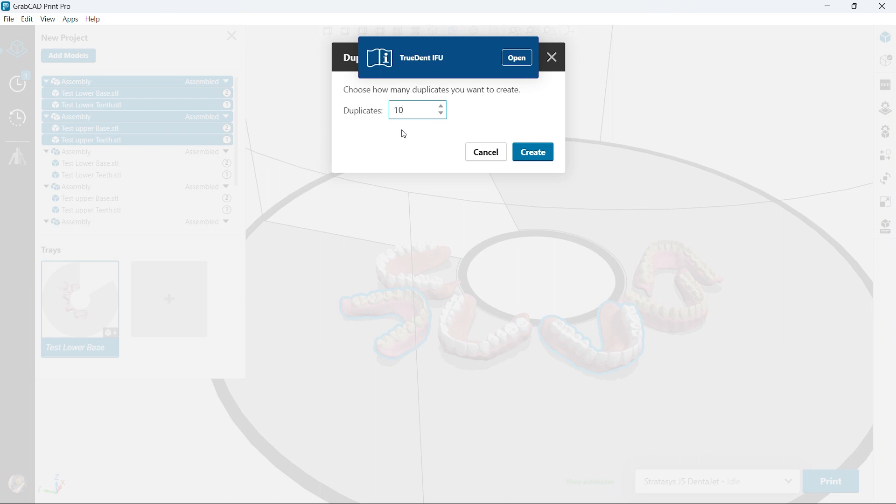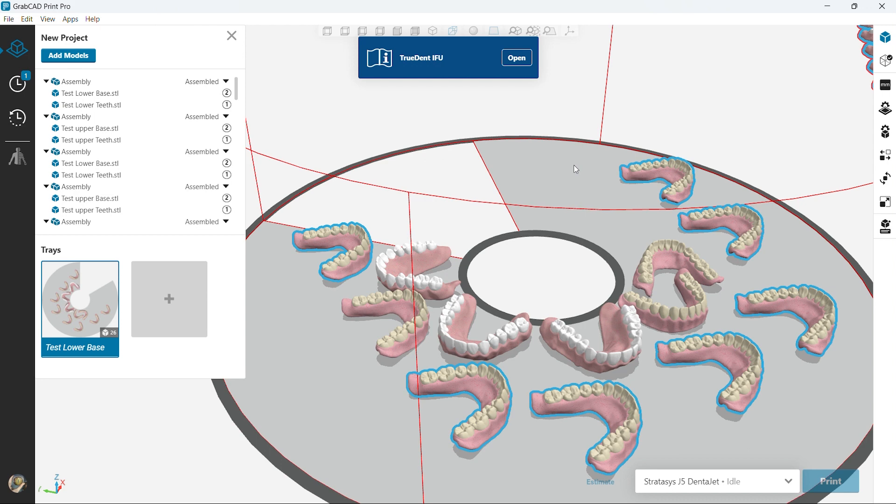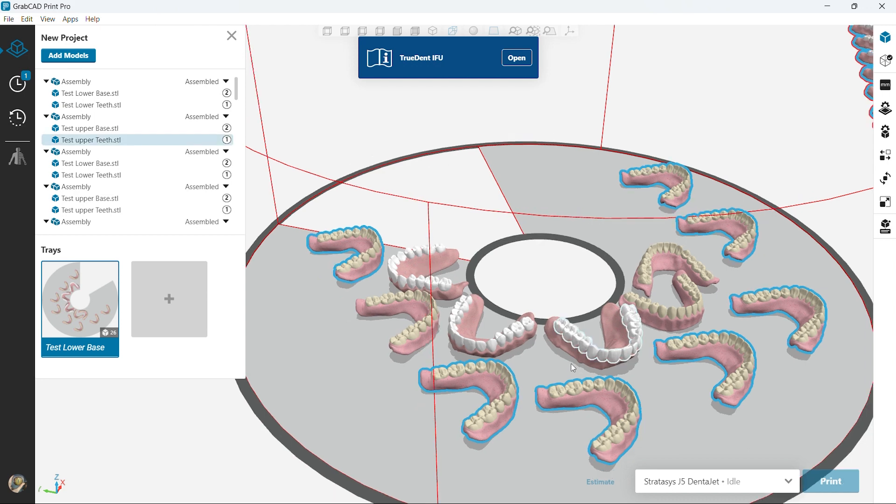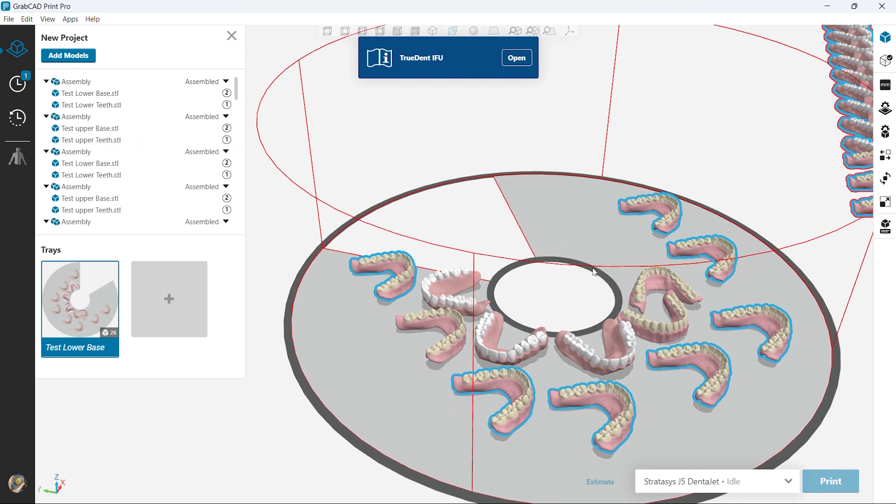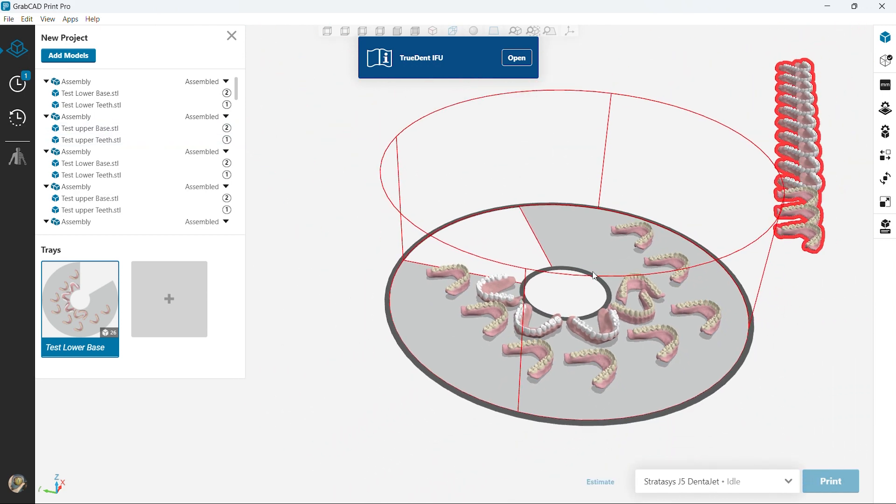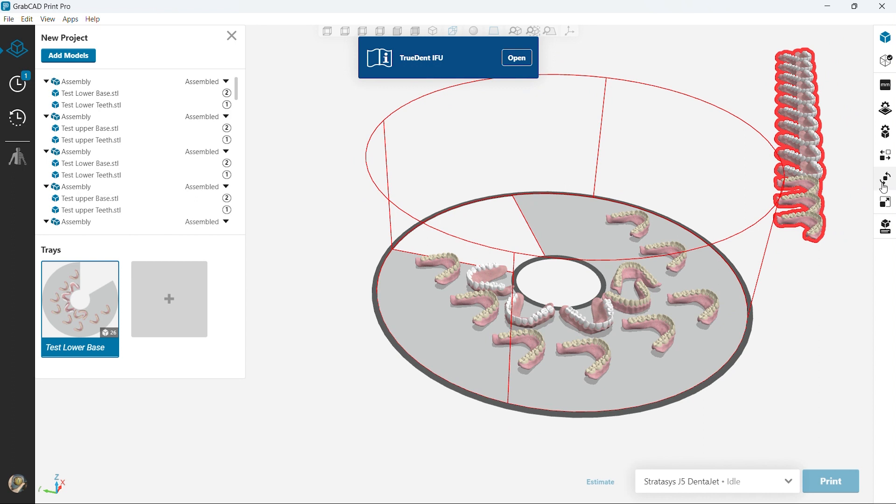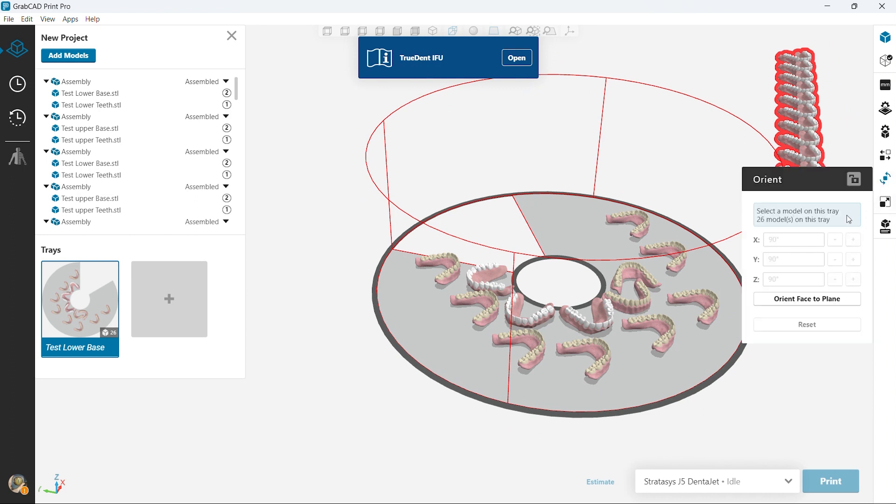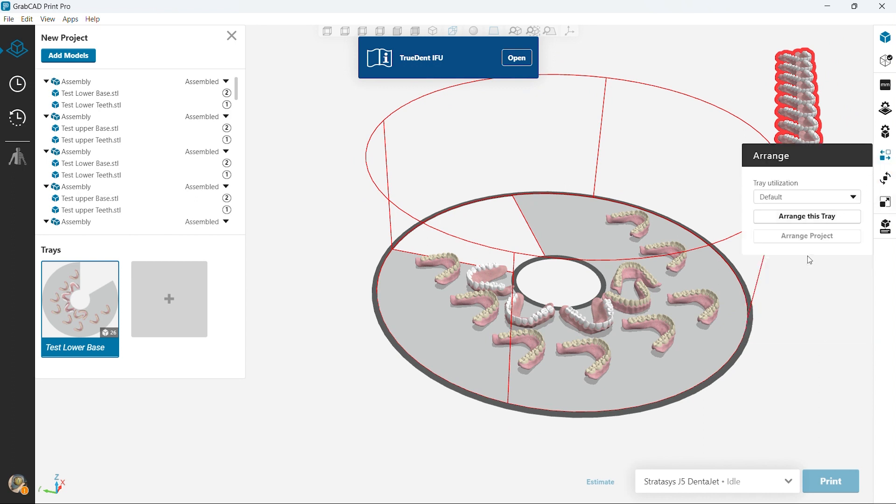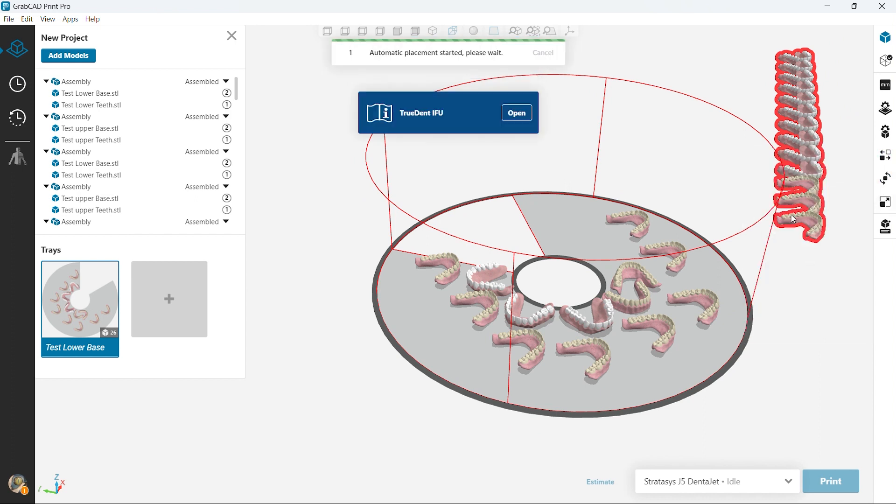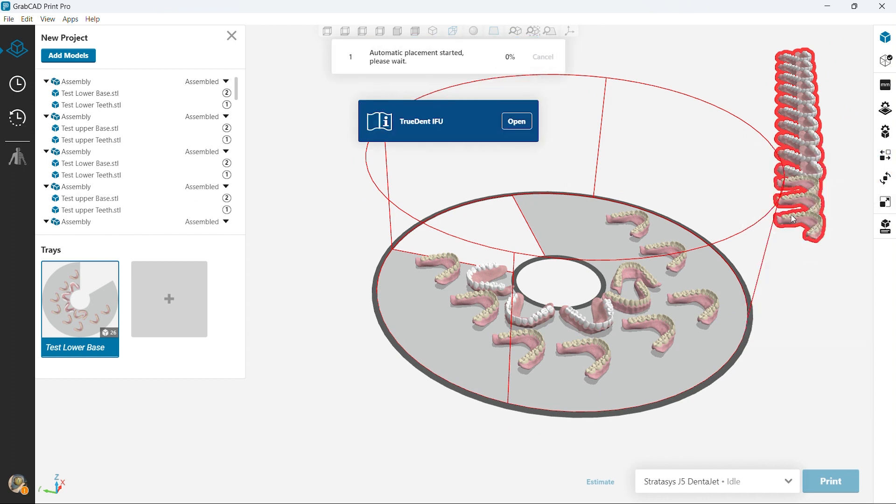Okay so let's go ahead and add more to this big tray that we have. So I think right now I'm gonna go for 26 total pieces. You see here we have a bunch of other pieces off to the side and we're gonna go ahead and arrange them. Software does a really intuitive job of doing this.